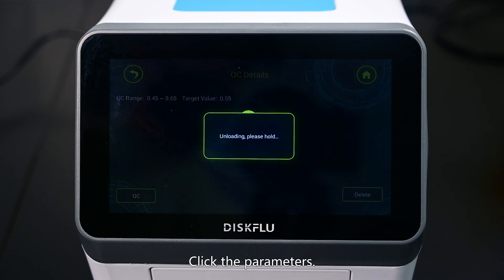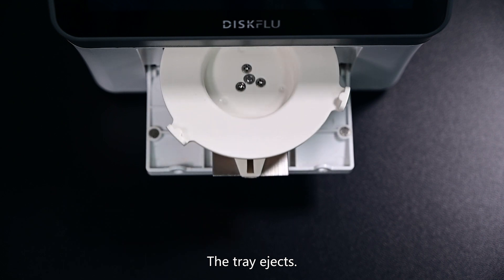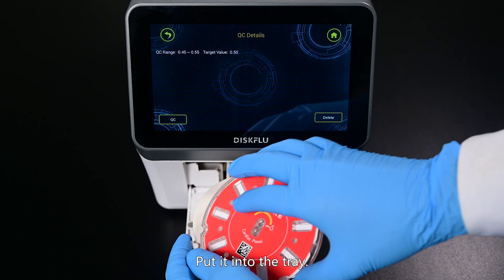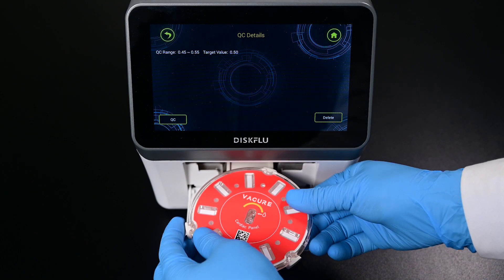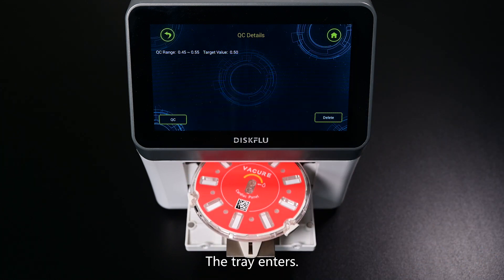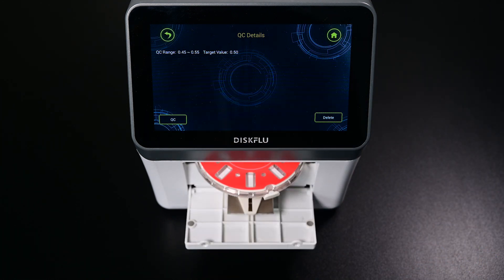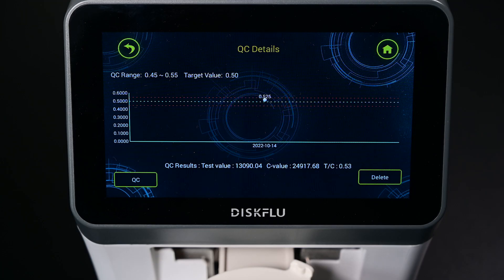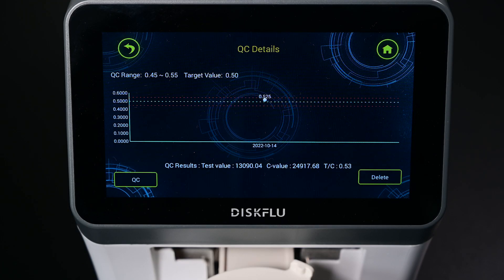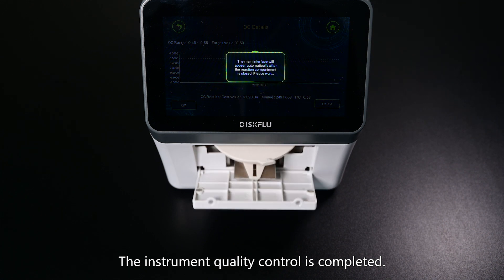Click the parameters. The tray ejects. Put it into the tray. Click QC. The tray enters. The test result is displayed. The instrument quality control is completed.